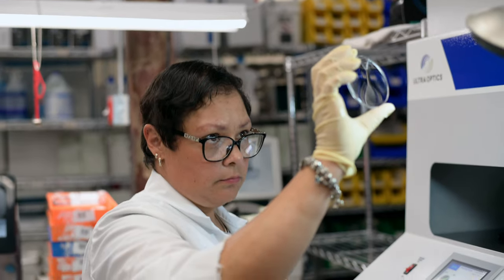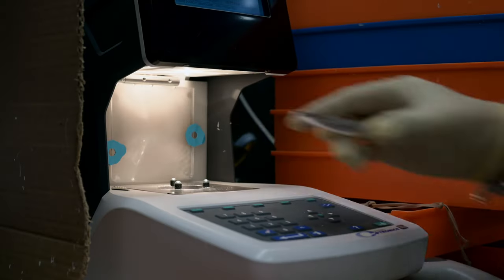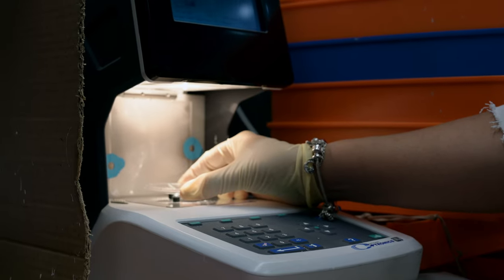You don't want to be worried about your glasses scratching from handling problems, which are bound to happen eventually. This coating makes it so much easier to keep your lenses in good condition. Without this coating you'd have to watch your glasses like a hawk, and you wouldn't be able to use anything other than a microfiber cloth to clean them. So if you don't want scratched-up vision, make sure you have a scratch-resistant coating on your glasses.